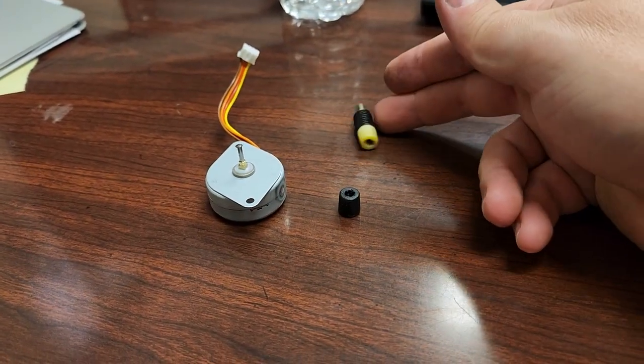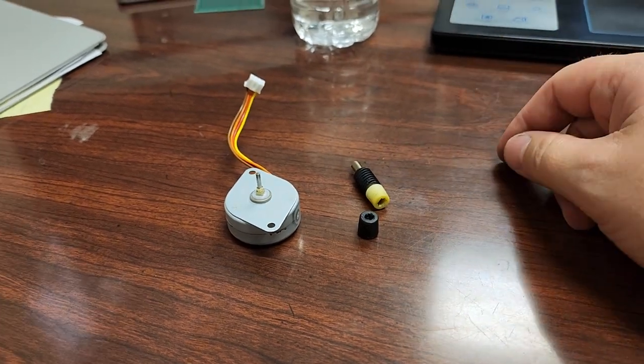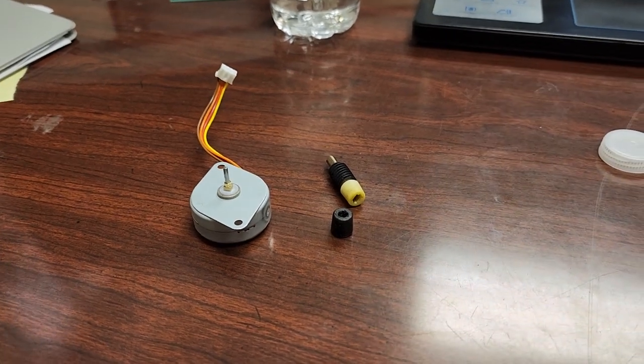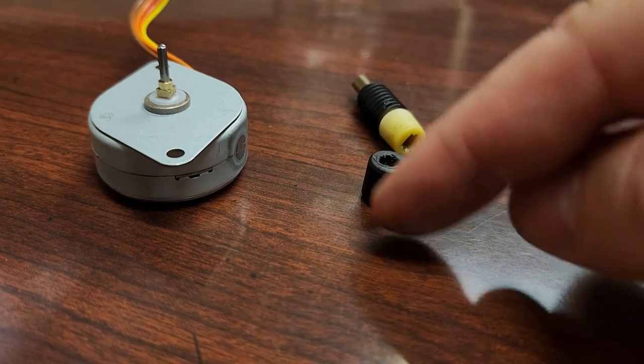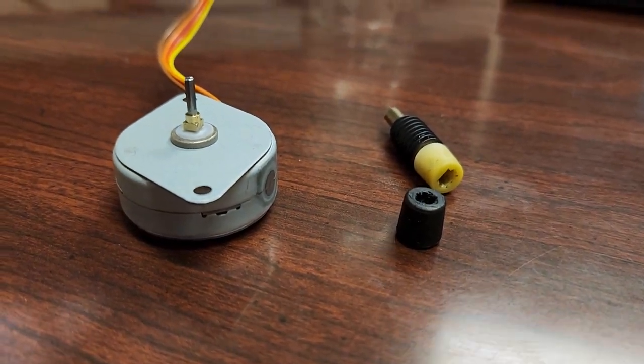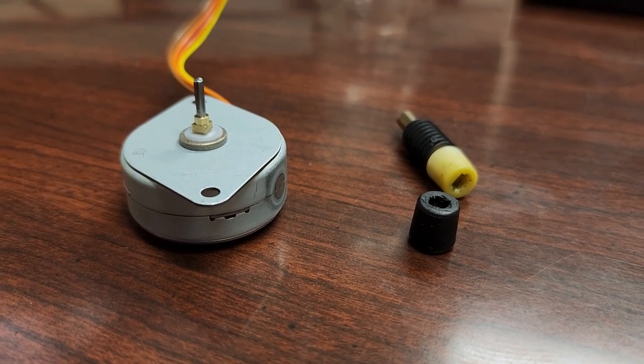And I would assume that it could just be made out of a regular piece of something that's 3D printed. Anyway, guys, let me know what you think. I would really like a solution because this is a very common problem with some very aging syringe pumps. It's the best way I could put it.